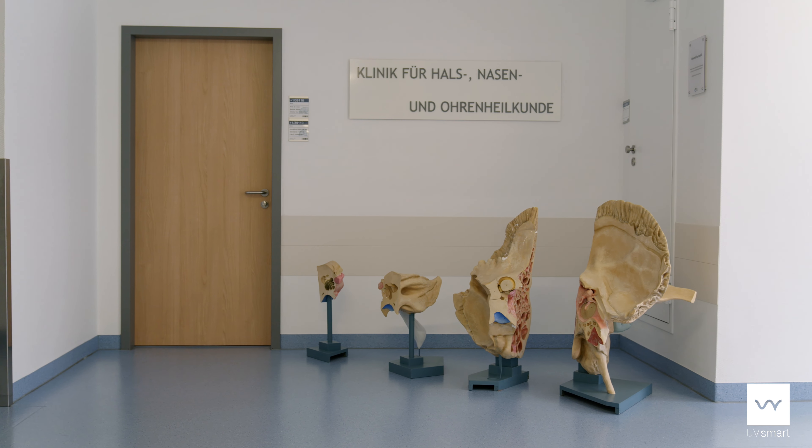The D25 is what we always call a box-based designed device for the disinfection of different medical devices — and not only medical devices. I use it for example for my telephone. It's great to clean your telephone and other things. It's very easy to use and you don't need much time. We found very good results in our studies, so I'm happy to use it.